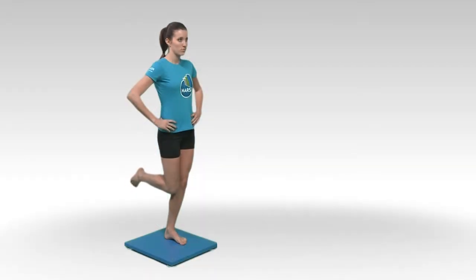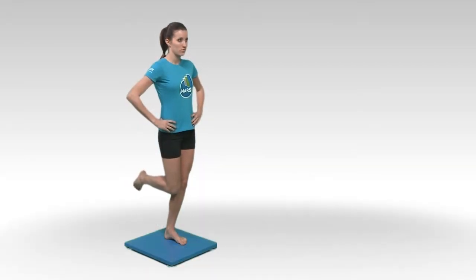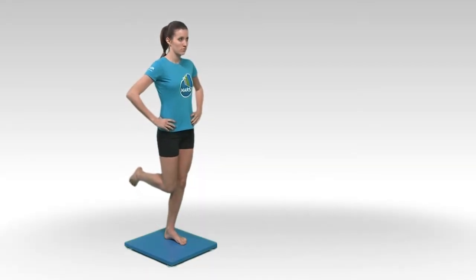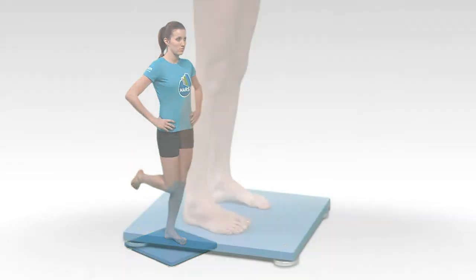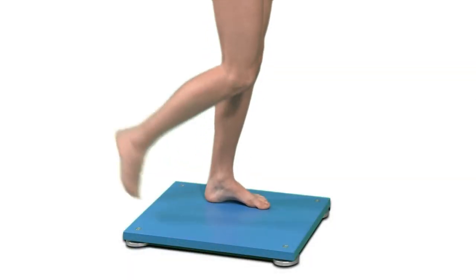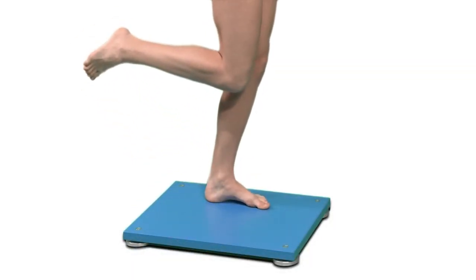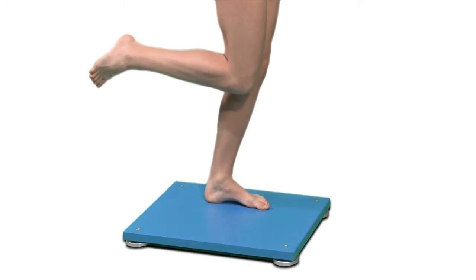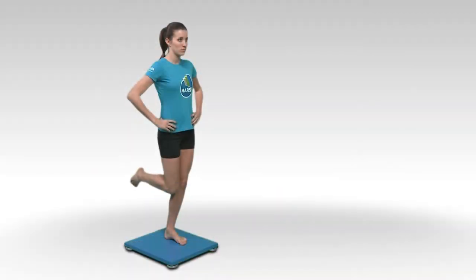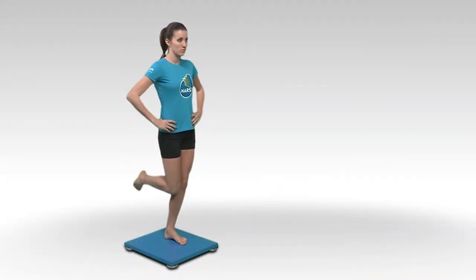The specific characteristics of body sway are influenced by several factors such as the size of the support area, the height of the center of gravity, age, and injury. Body sway is evaluated through measurements of the sway of the center of pressure below the subject's feet.